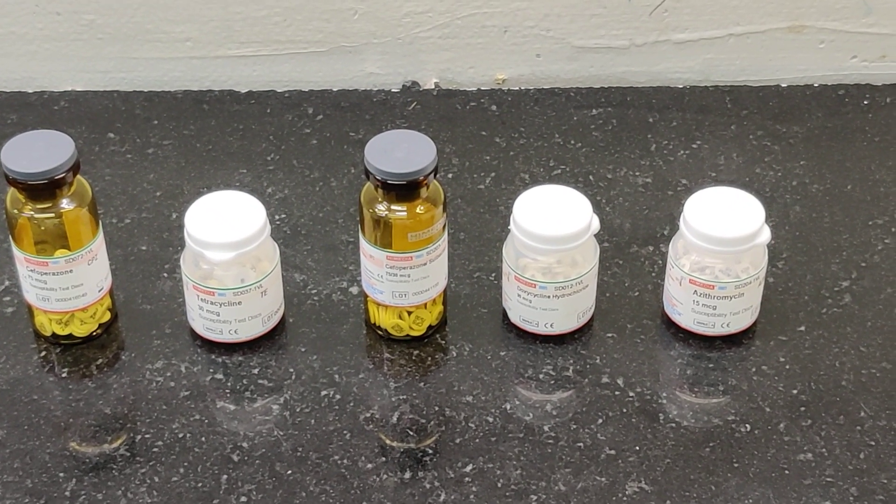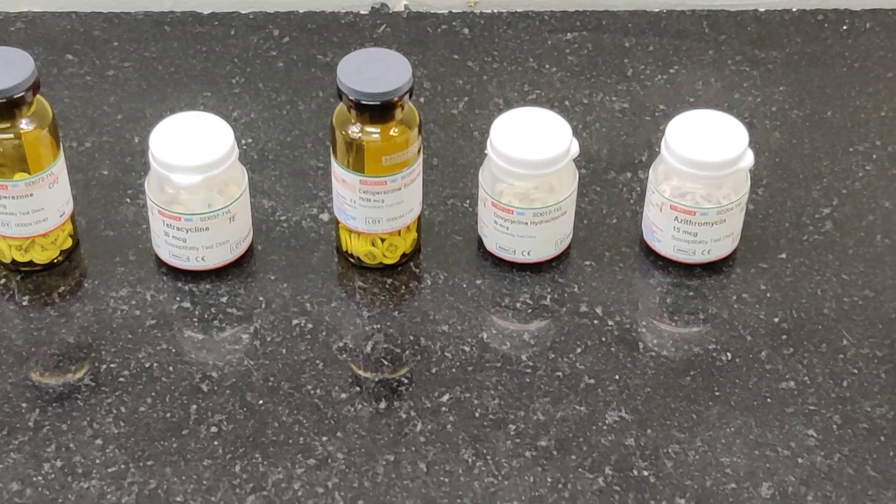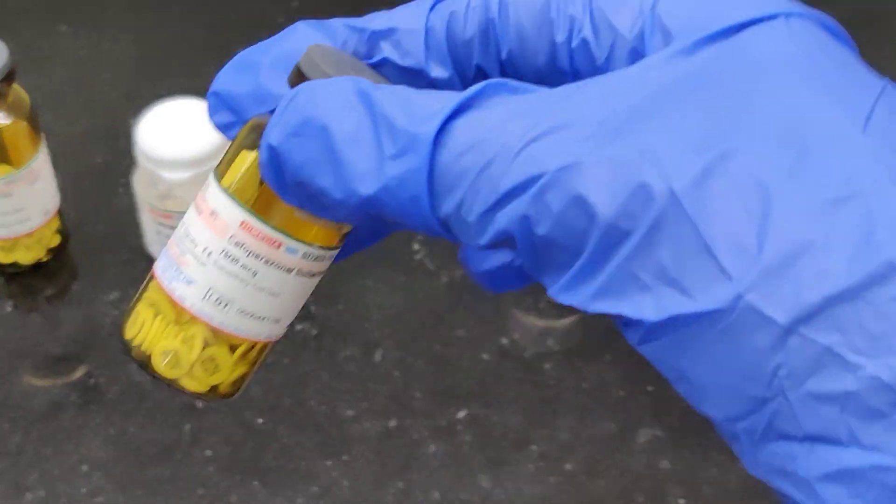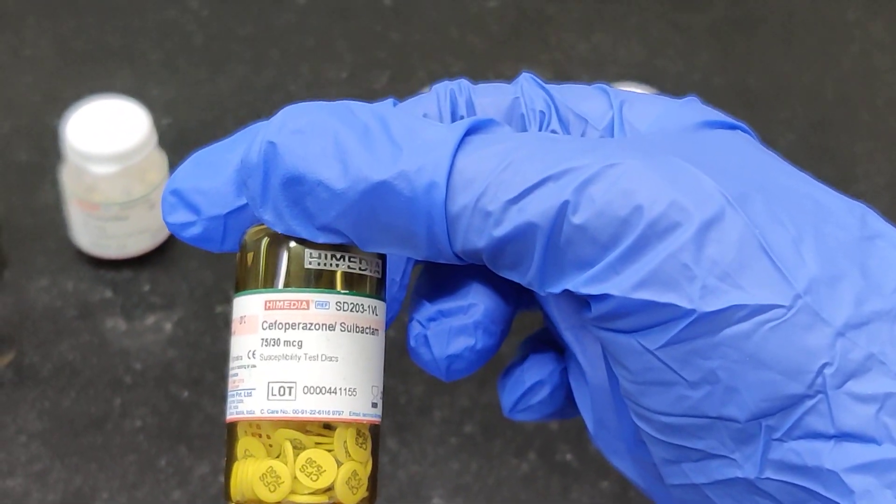Hi all, this is Dr. Mamita Java. In front of me you can see certain bottles. What are these bottles? These bottles contain antimicrobial discs. We use these discs for the disc diffusion method, which is a type of antibiotic sensitivity testing method.